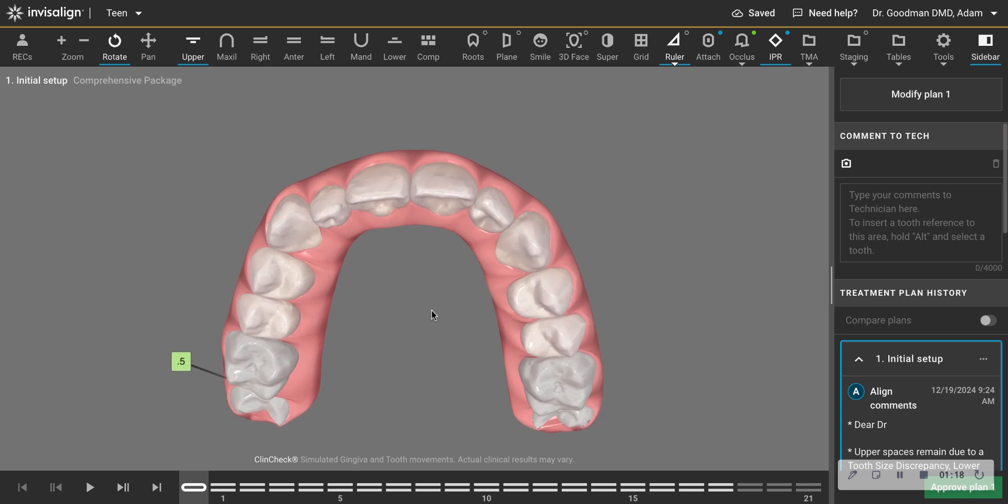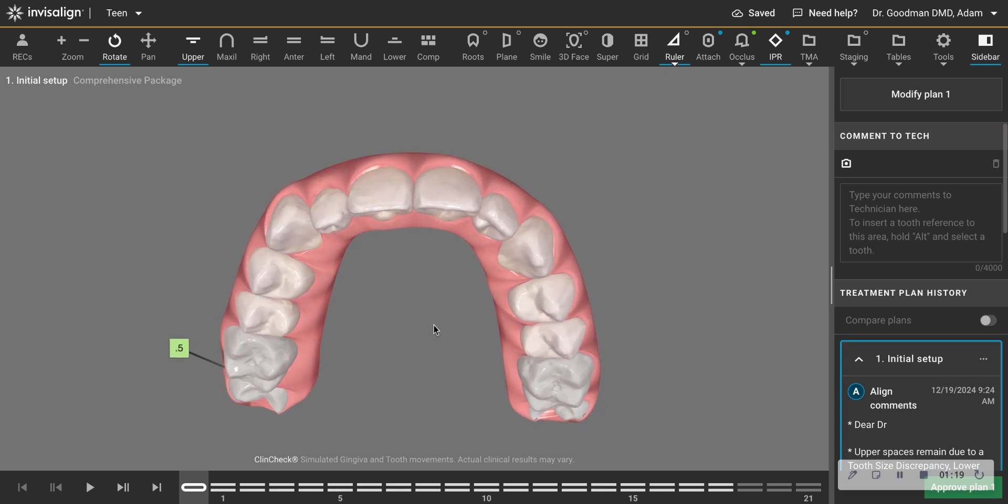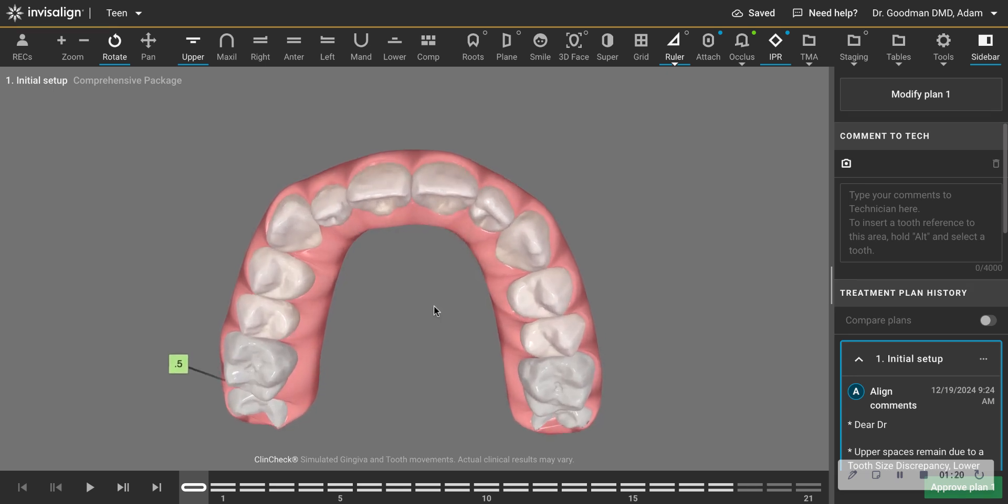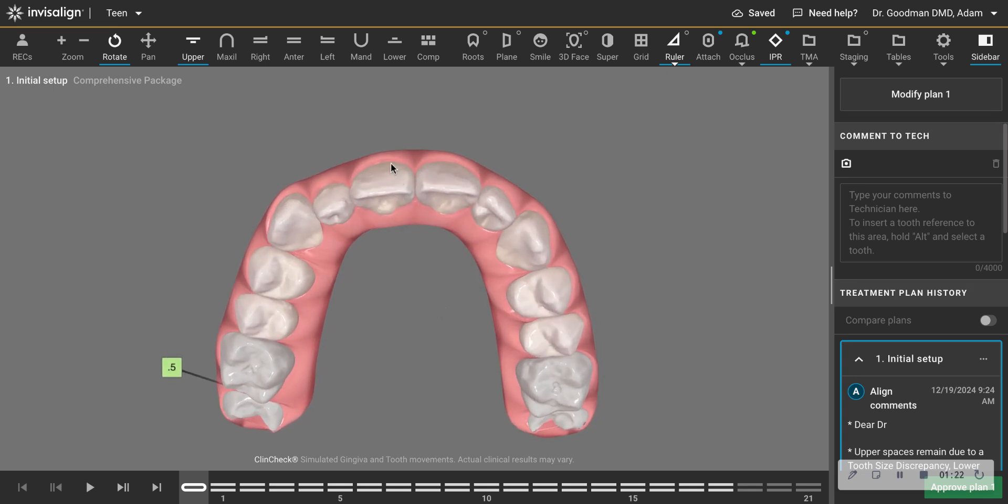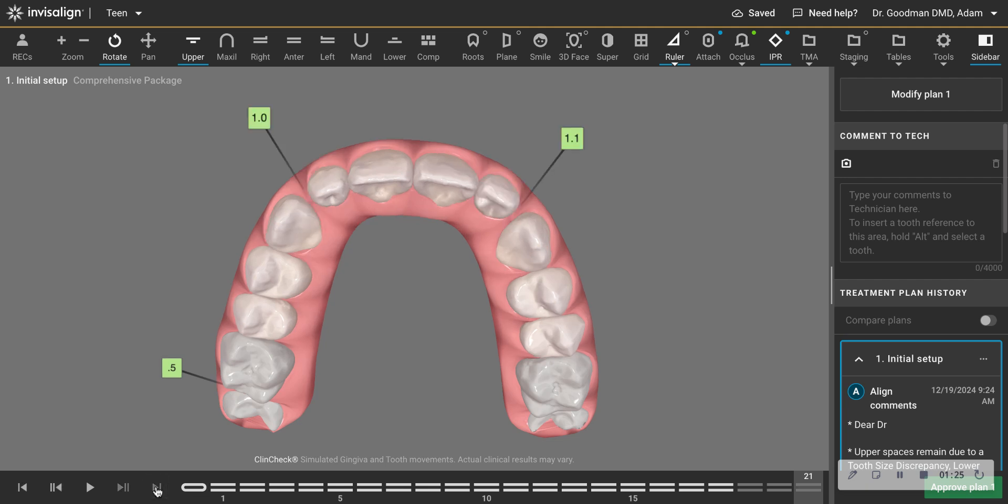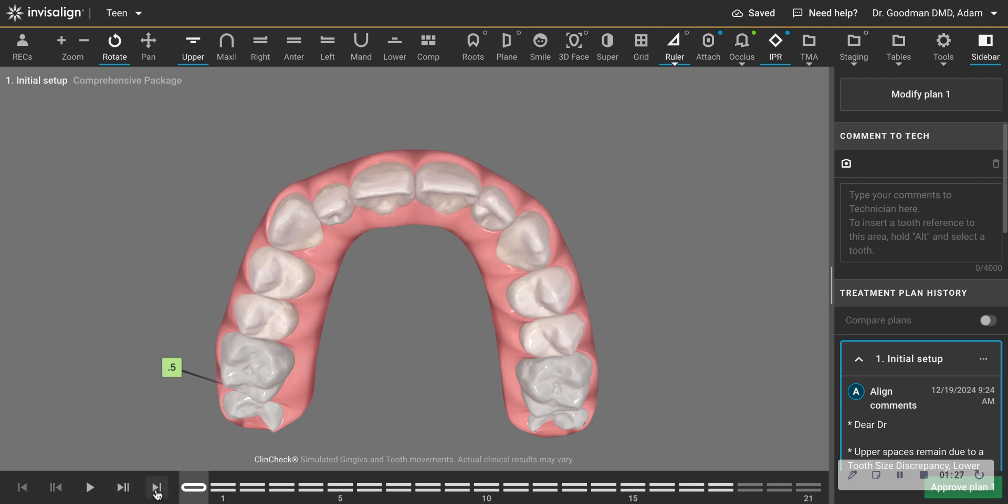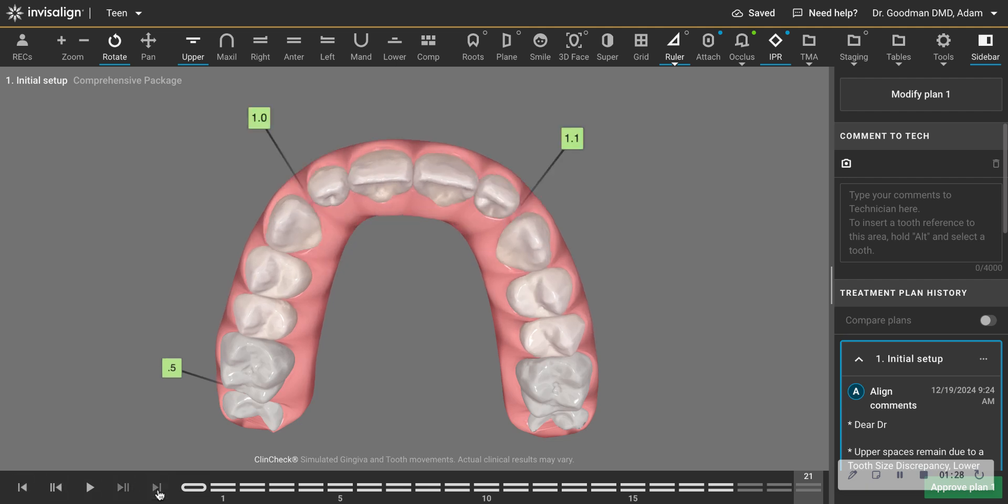if you look at the gingival margin, let's kind of put it this way, where you just barely see the gingival margin. And when you advance these teeth, you still see that gingival margin. That is not how teeth want to move.